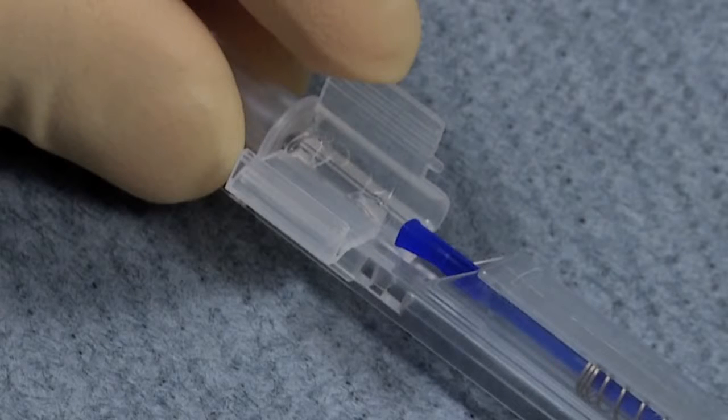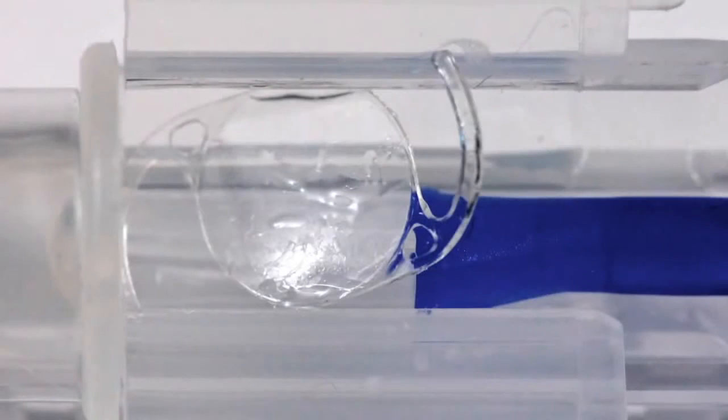This shows the correct method of only slightly closing the cartridge wing prior to lens compression. If the lens pops up during plunger advancement, reposition the lens and ensure that the optic and both haptics are properly seated under the grooves.